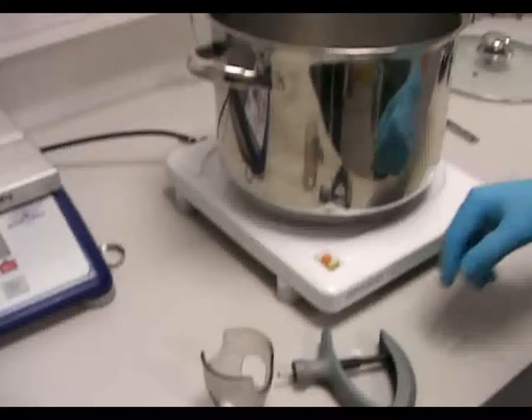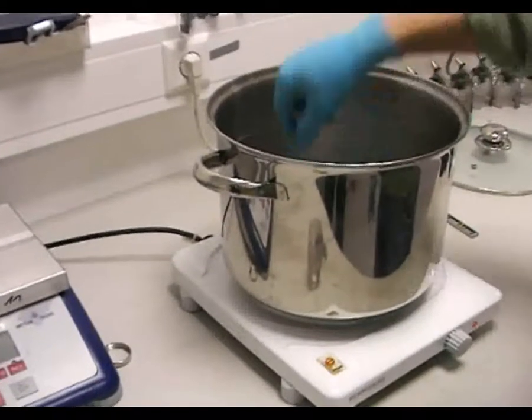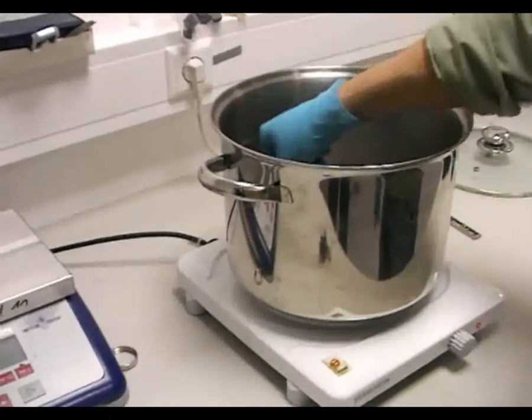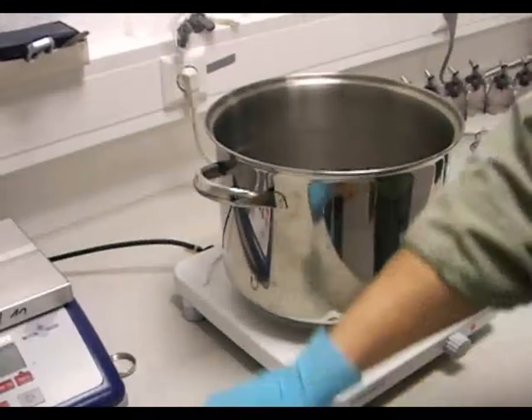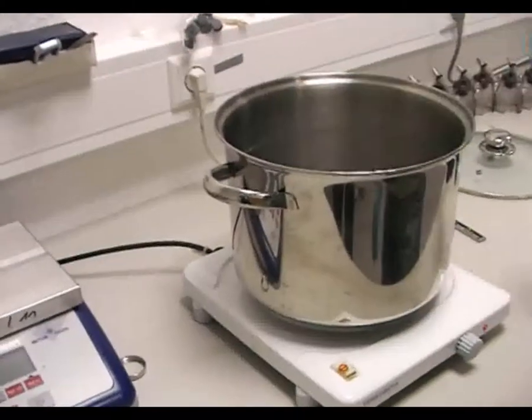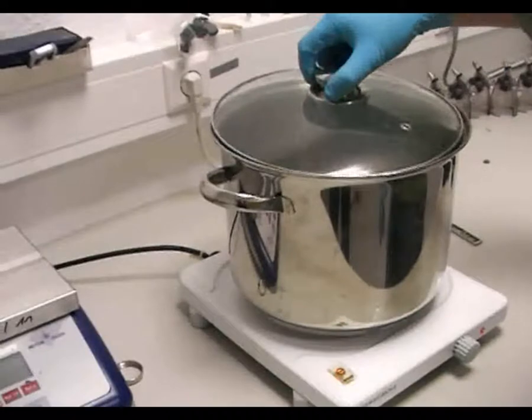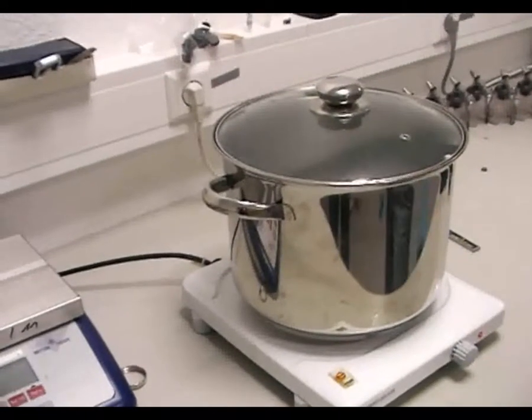Diese können in den Topf eingelegt werden und somit komplett 20 Minuten ausgekocht werden. Nach dem Auskochen kann die Spritze nach Abkühlen entnommen und leicht durchgespült werden.